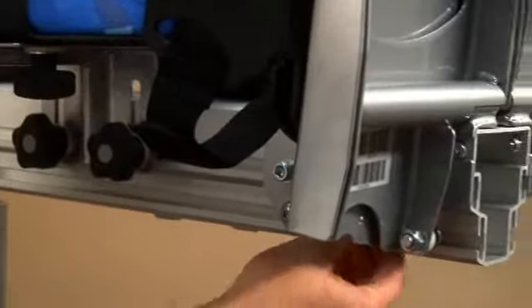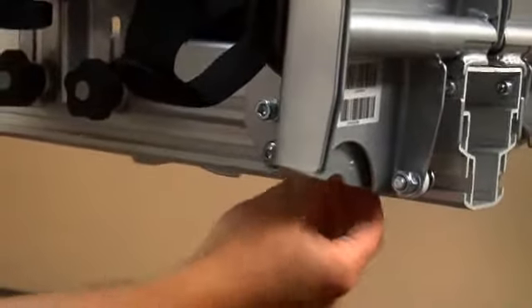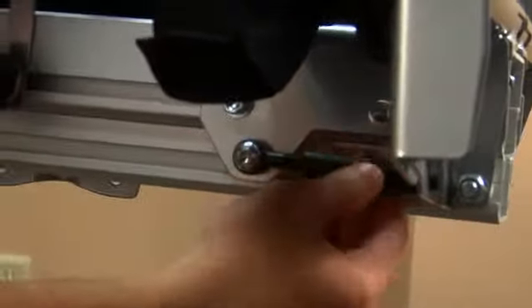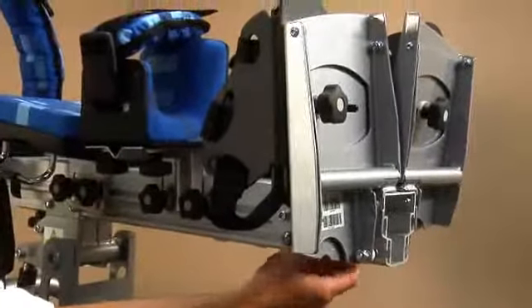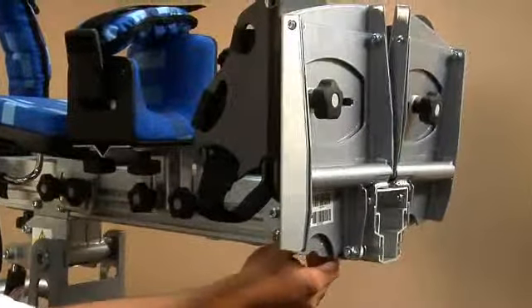The foot plate also, by rotating this little knurled screw to the side here, you can see you can dorsiflex and also plantiflex the foot plate.